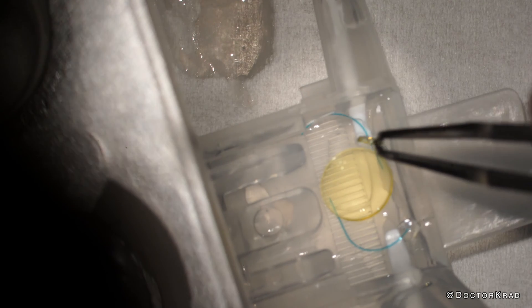I am so disappointed — I was really hoping this would work. I think we ought to try this again. I know RxSight is working on a next-generation, new and improved injector for their lens implant, but I'm impatient and I want to see if I can make it work with another injector for three-piece silicone lenses.